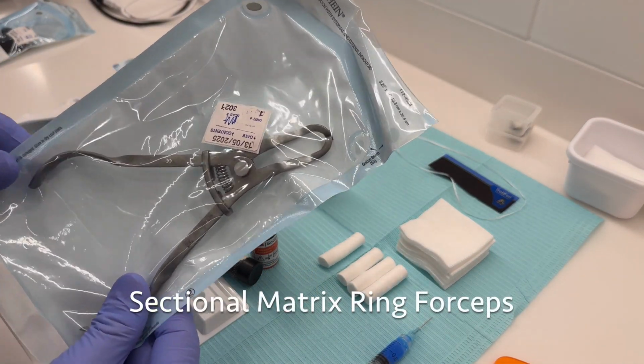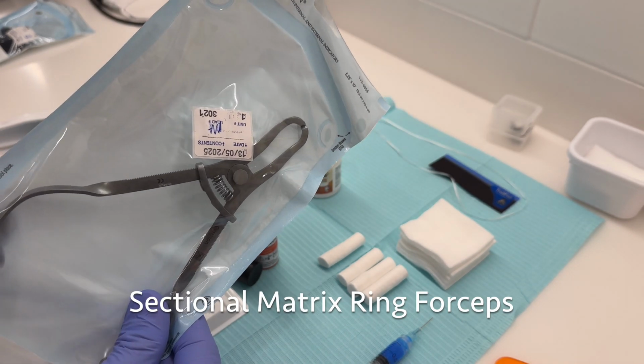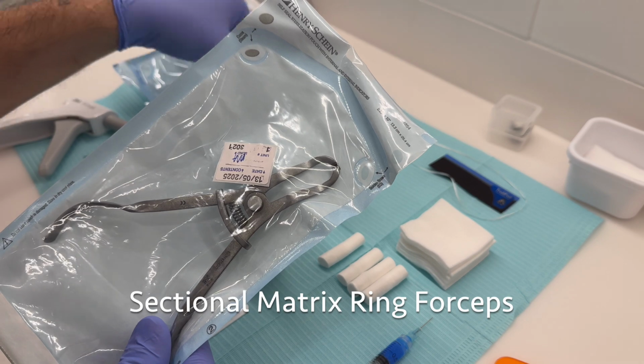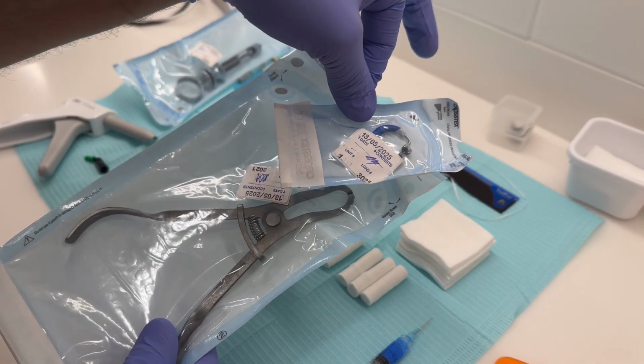In conjunction with the sectional matrix and ring, we have our sectional matrix ring forceps. These are used to help you place the sectional matrix ring.